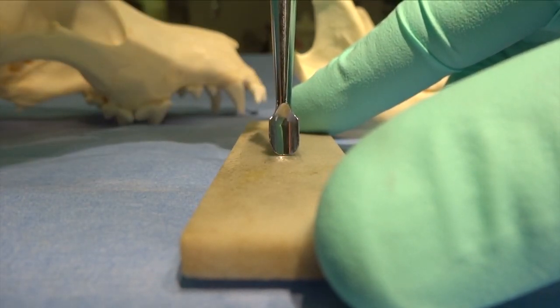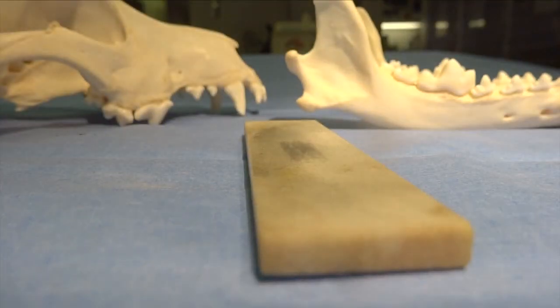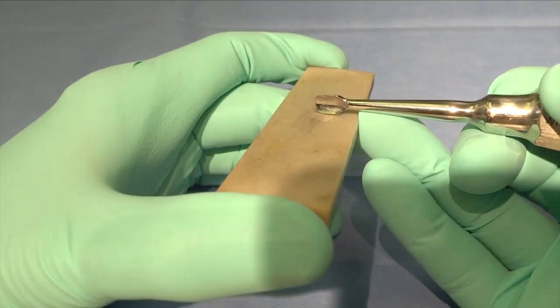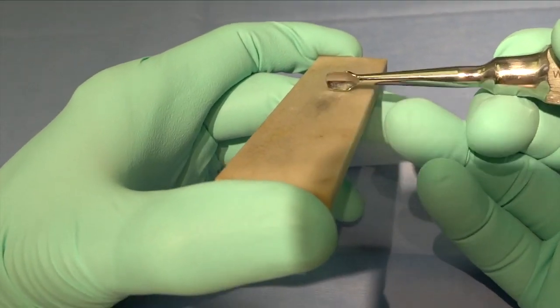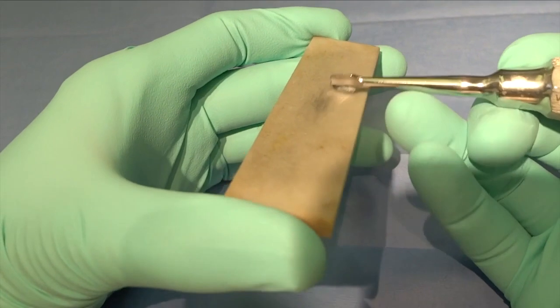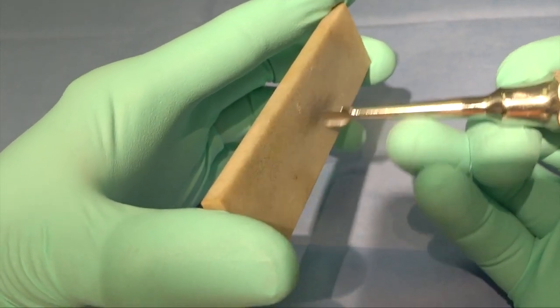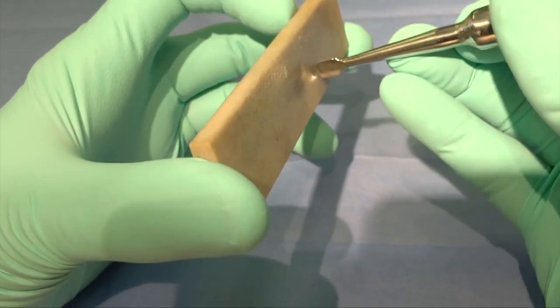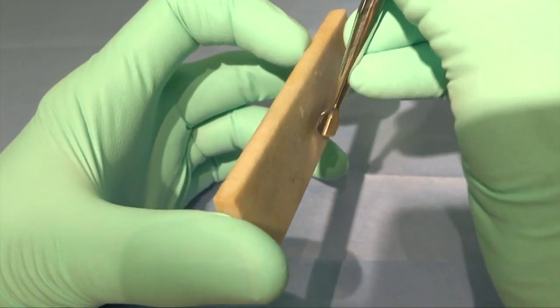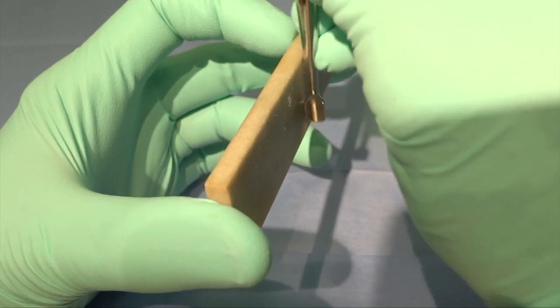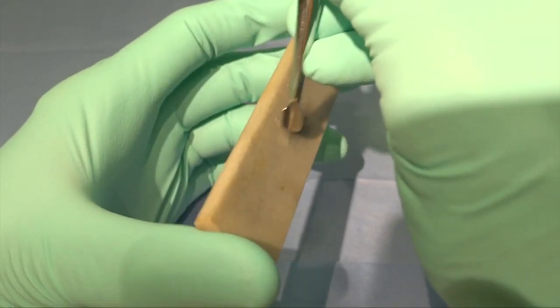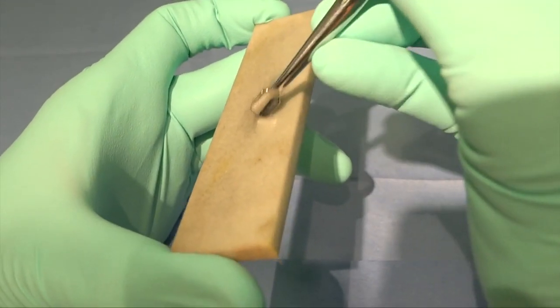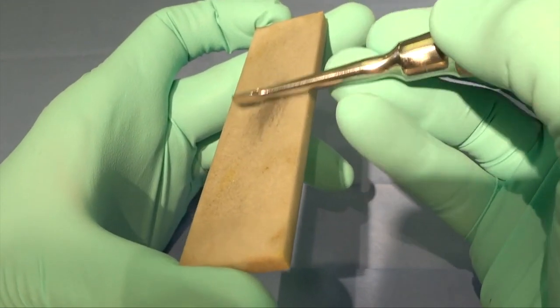So I recommend on every instrument that you actually pick up the sharpening stone so that you can have it at eye level. And that way you can move the stone and your hands in order to get the best orientation. You can do this on all three of these instruments. That way you make sure that that blade and that stone have no gap between them, and that way you maximize your sharpening.